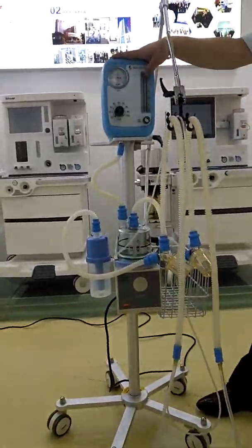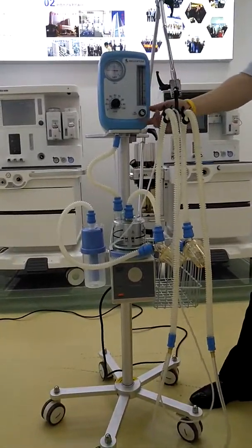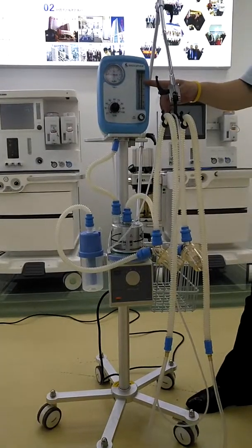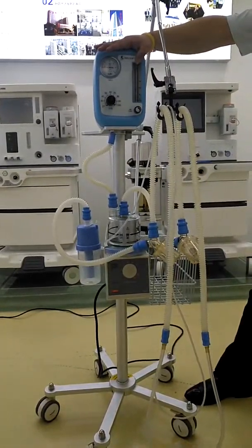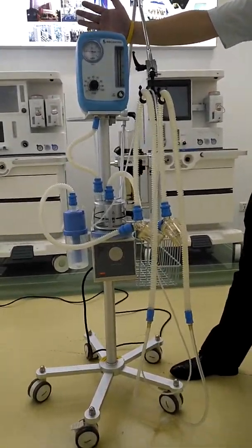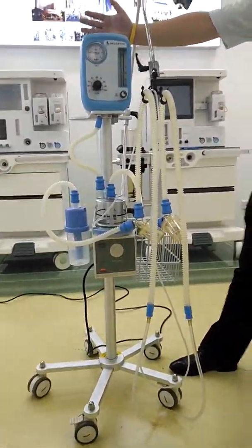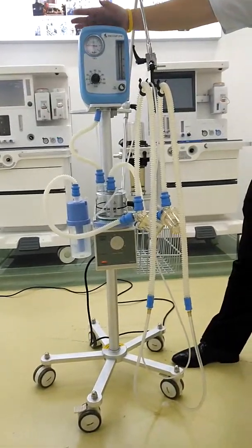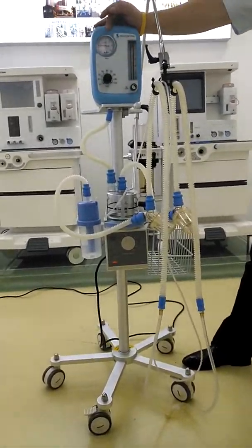Here is the flow meter for adjusting and monitoring flow. We know for the CPAP system there are three main parameters: oxygen concentration, pressure, and flow. All can be monitored on this main engine.